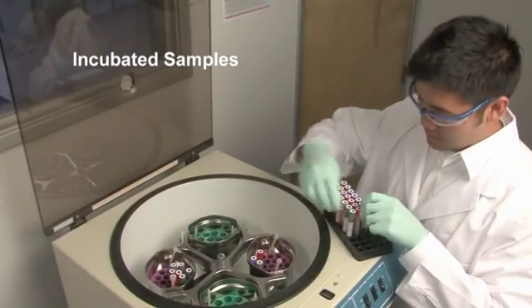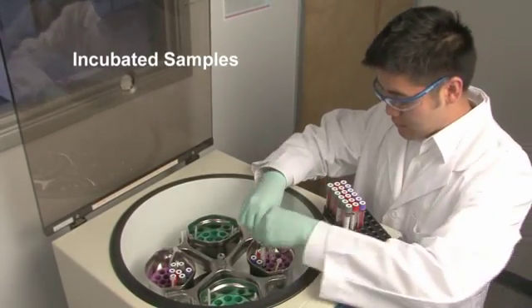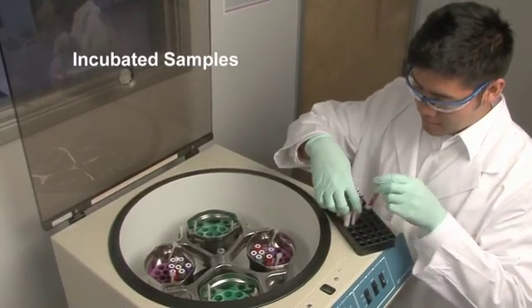Following incubation, either at the clinic or within the laboratory, the blood collection tubes are ready for the plasma separation step.